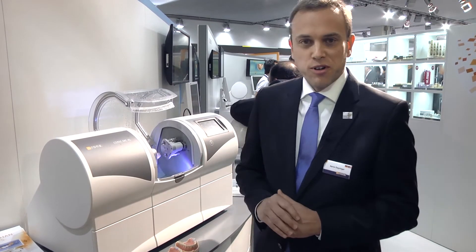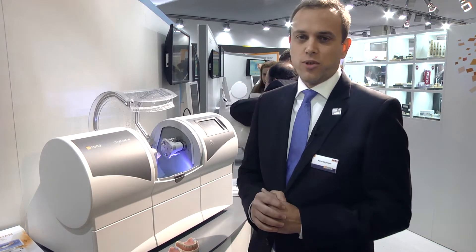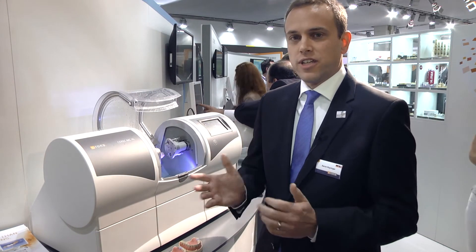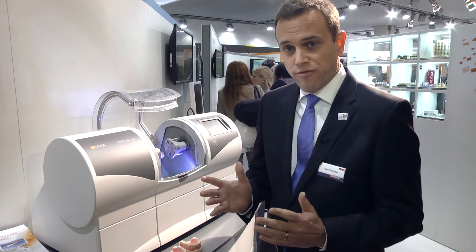This week we're excited to show a new feature that we're going to be introducing with the CEREC 4.4 software, which we're introducing this summer. It's a new grinding option for glass ceramics, lithium disilicate, and composite materials. It's called Extra Fine.